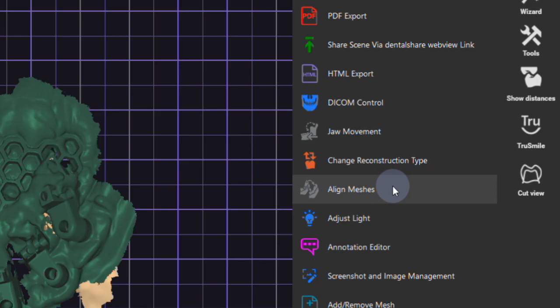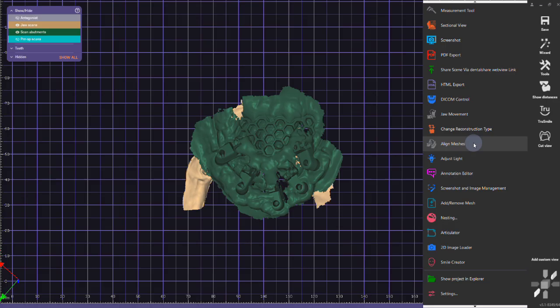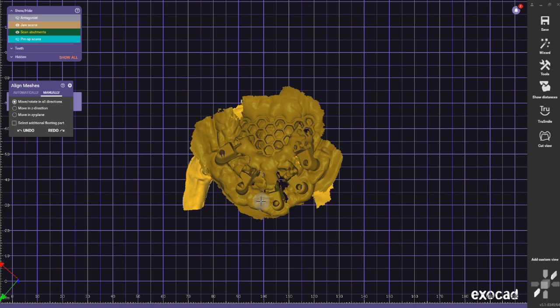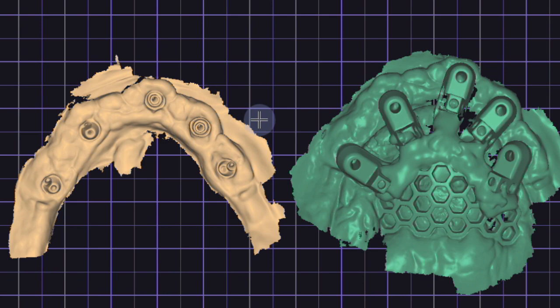Now I'm going to start with aligning the scan body scan. The IOS scan body scan is completely not aligned, so go to tools, align meshes. Here what we're going to do—first I'm going to move it to the side of course—and then I'm going to find similar points.